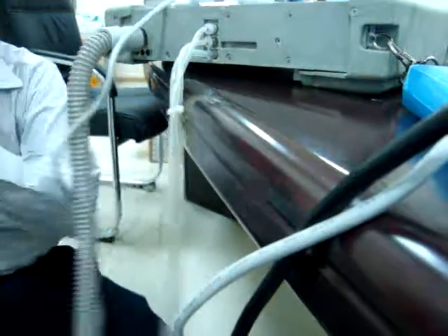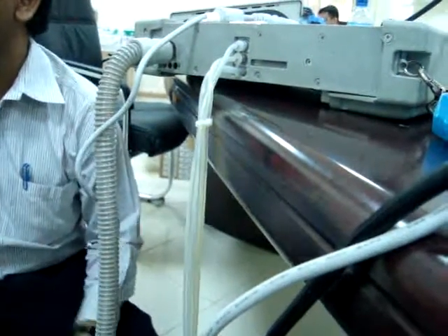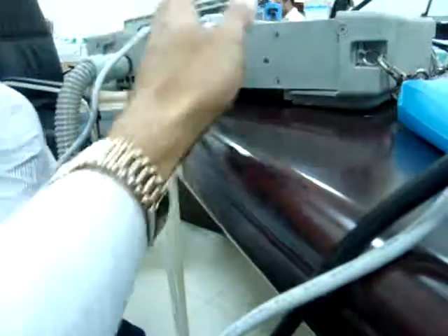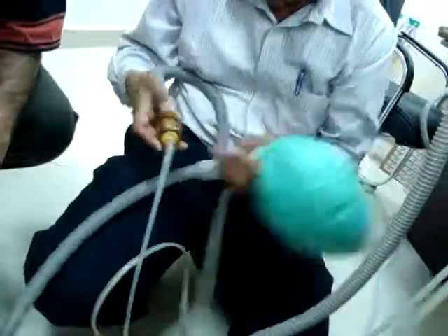Why do you have to collect this air? So the ventilator can understand for the next breath. The feedback. Otherwise, how can it give the next breath? The ventilator should know the status. This is the pressure transducer. From here, see, there is a relief valve also.